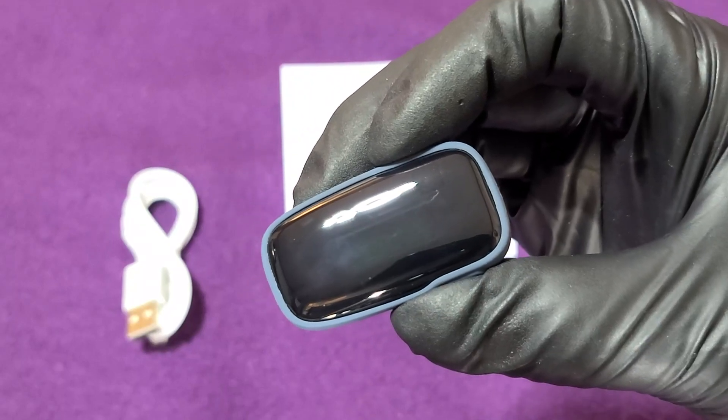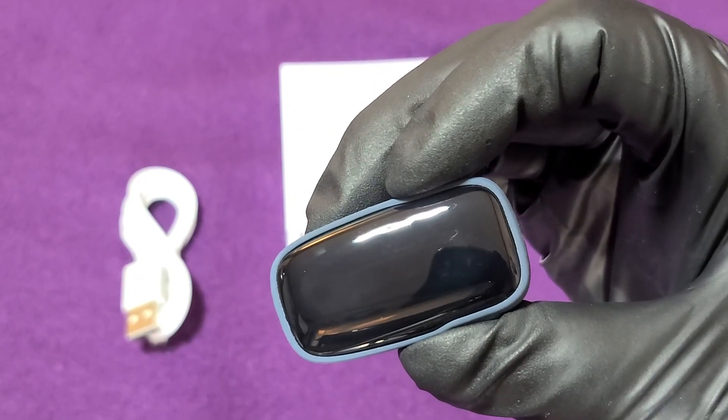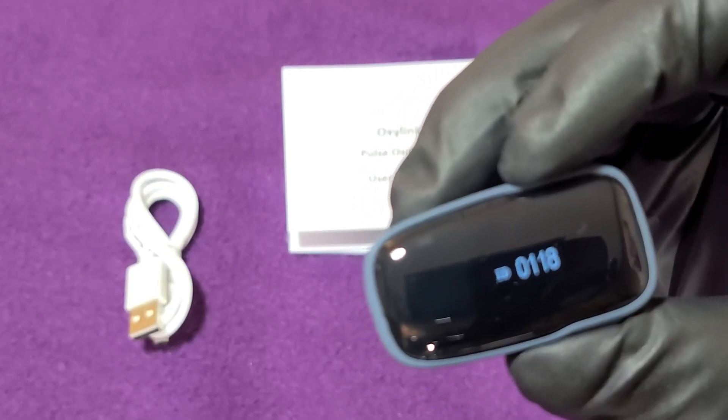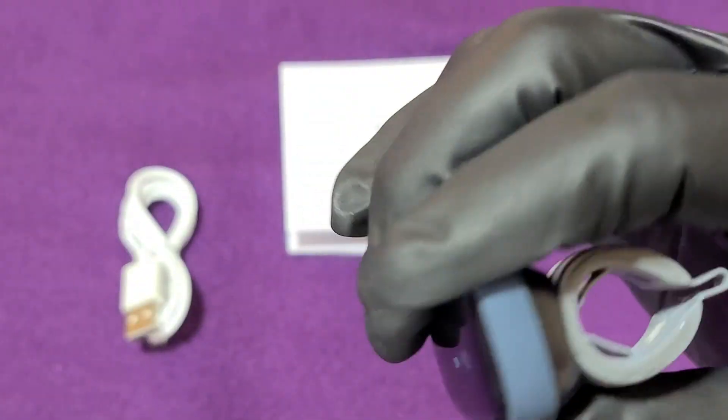What's up, Amazon Dan, Colorado Strong, with the OxyLink fingertip reader. It's a nice little unit — got the time set up from the app I installed. Here's my ID — nice.